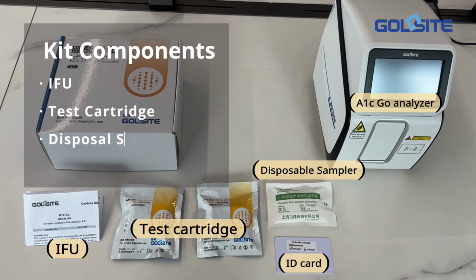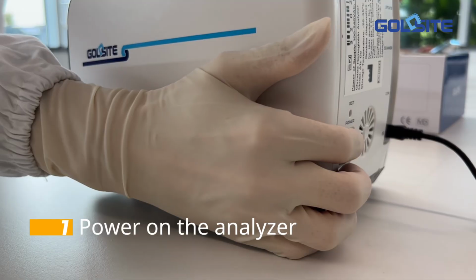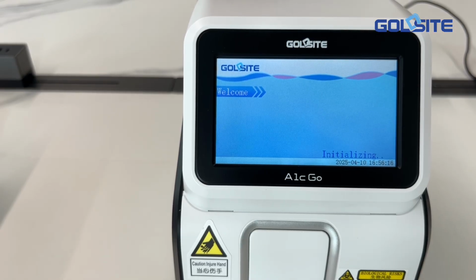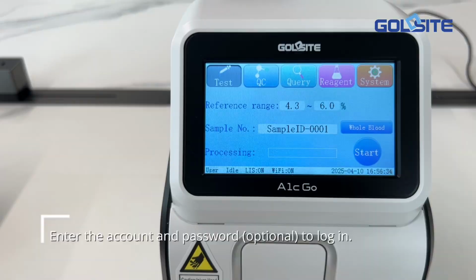Get prepared with all the kit components. Power on the analyzer. The initialization starts automatically. Enter the account and password to log in.